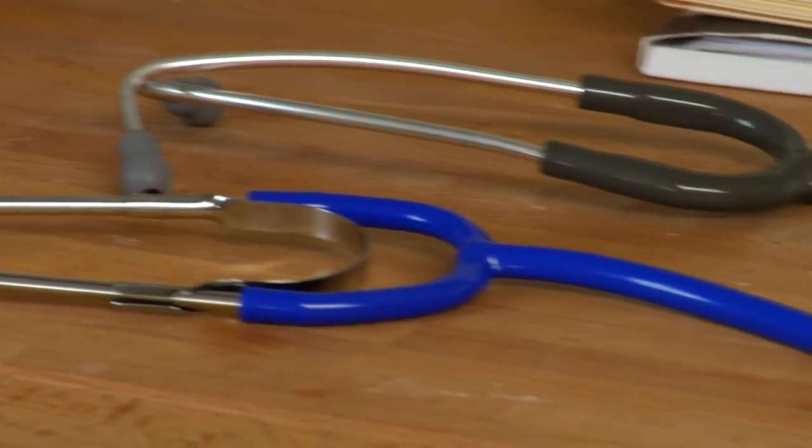Hi, my name is Katie Brosnan. I'm a registered nurse here in Austin, Texas. And today I'm going to talk a little bit about how to choose a stethoscope.